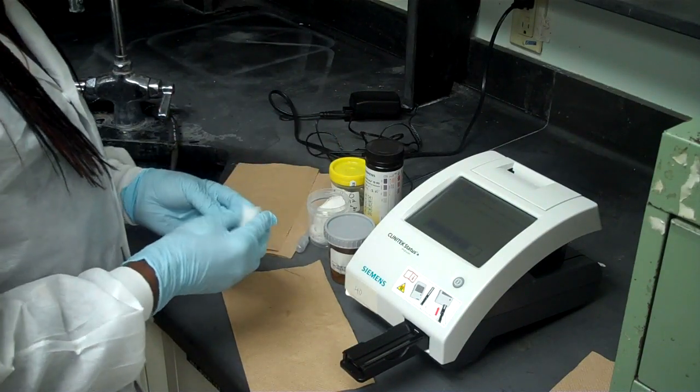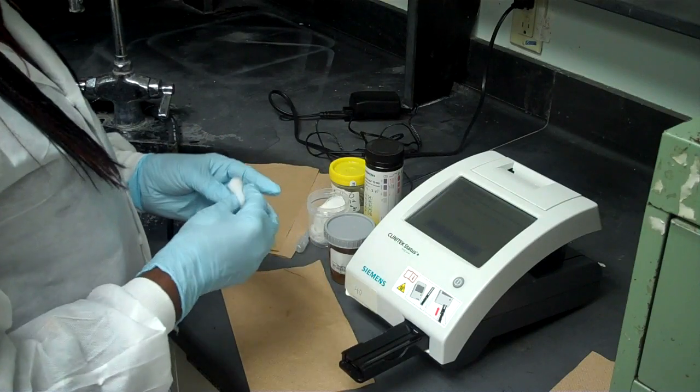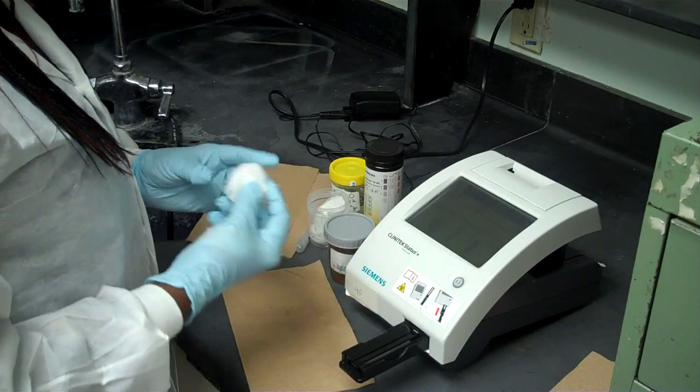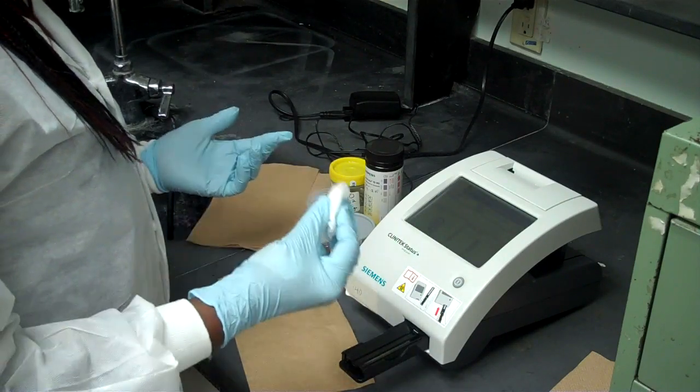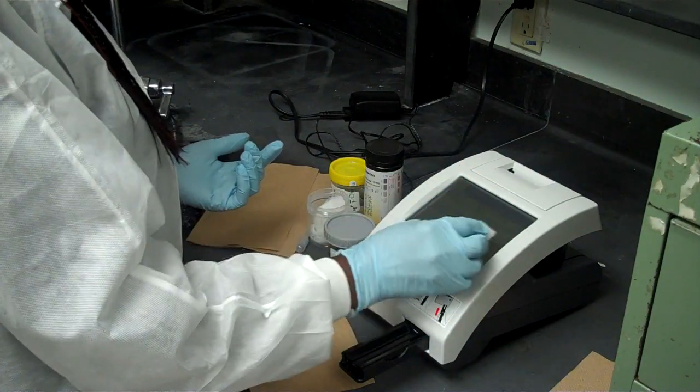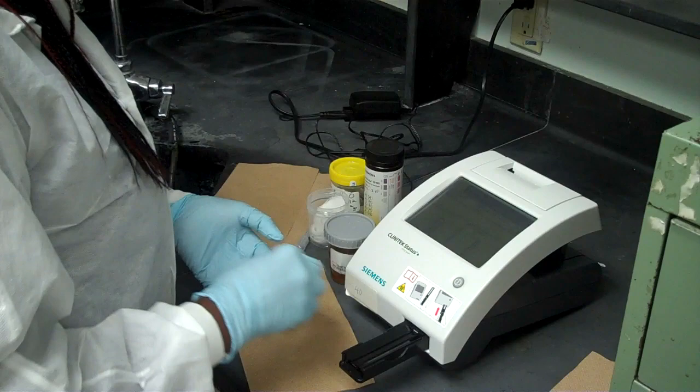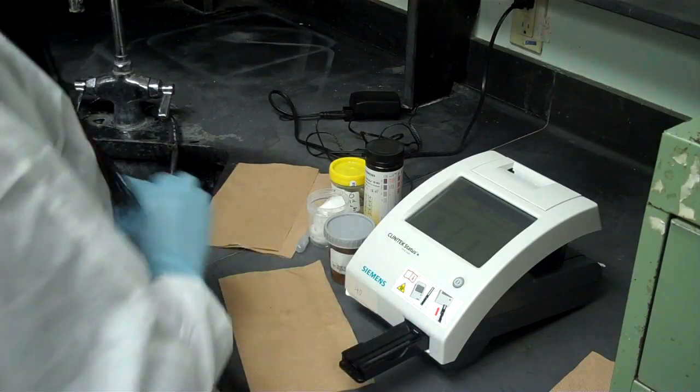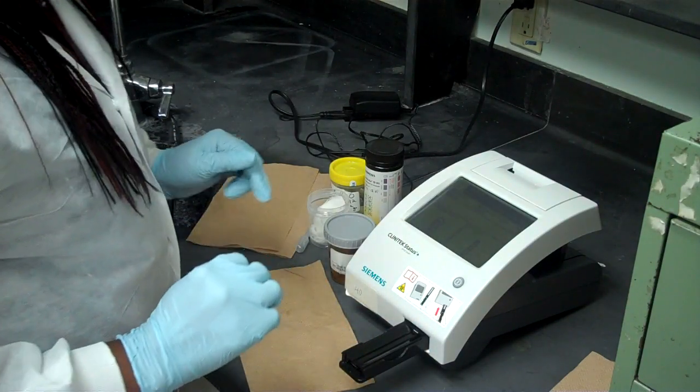Now before using it, we have to make sure we clean it. Clean it with wet gauze. You wet the gauze only with distilled water. So you clean that. And then you clean the table as well. Dispose of that in a biohazard bag.